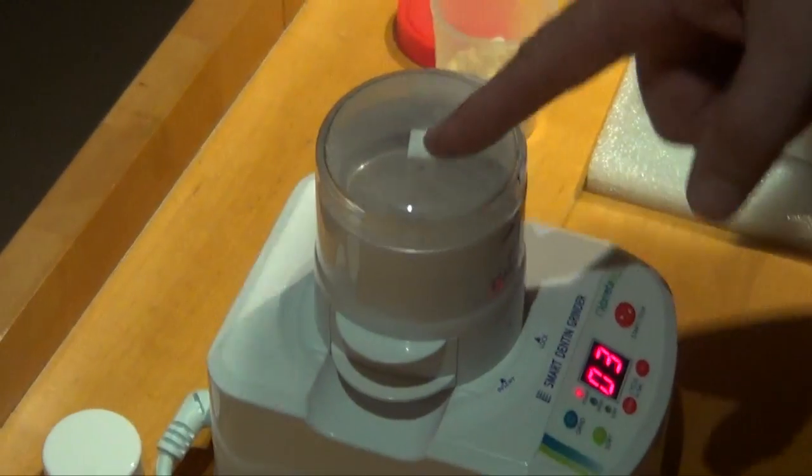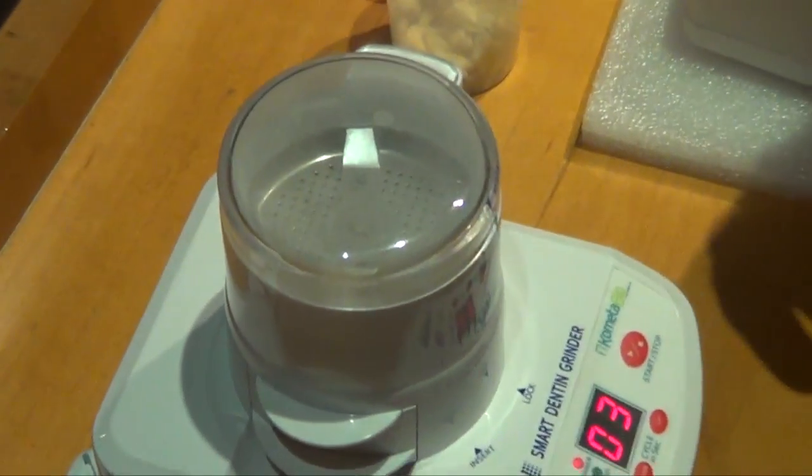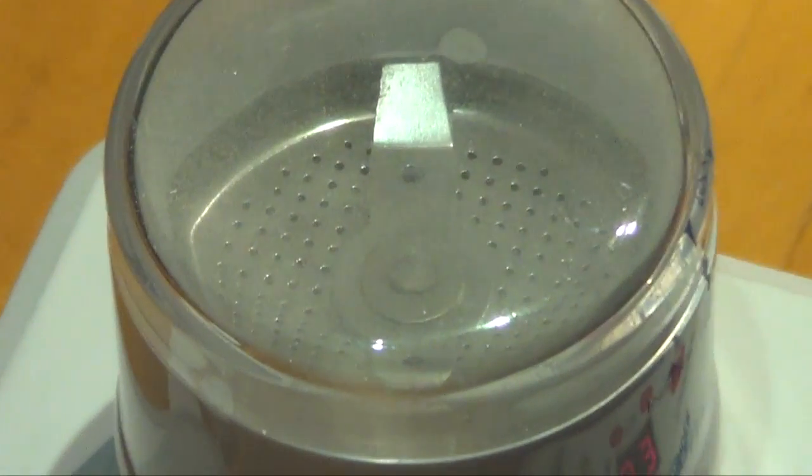Almost done. You can see here from here that there are some particles remaining. We can repeat the grinding, which I will do.